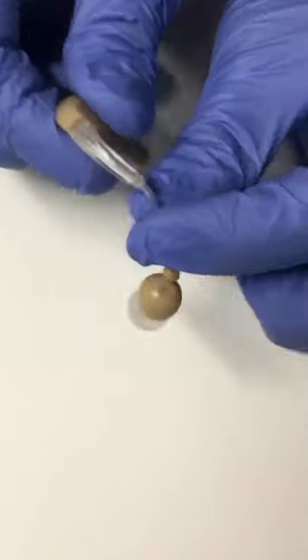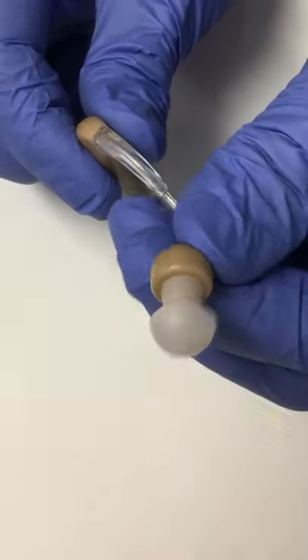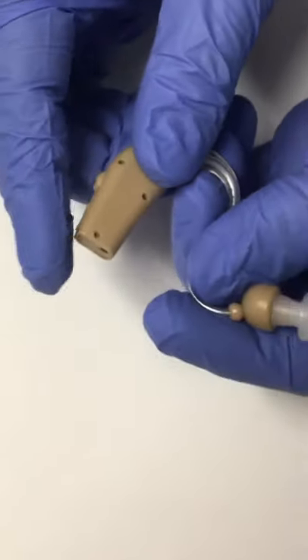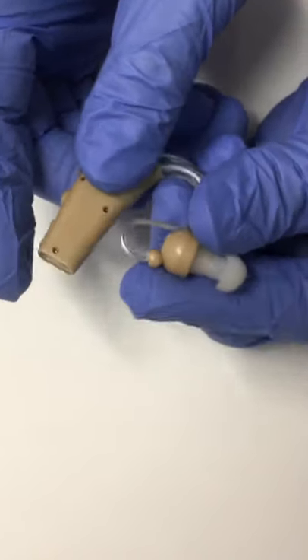It has a little wire piece going into this rubber tip that's supposed to go into the ear. So, for $20 someone can get this little amplifier, which helps a little bit.